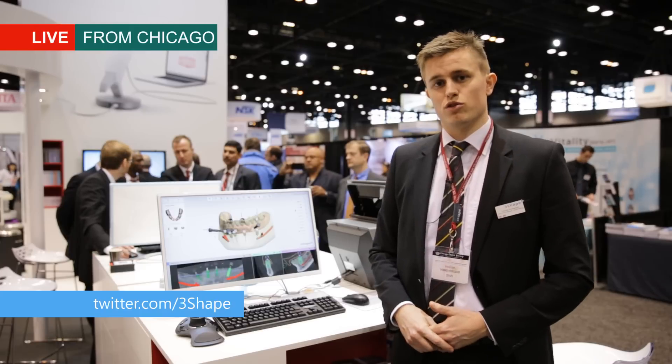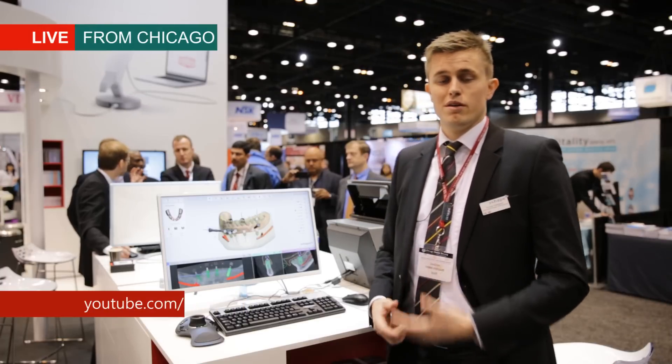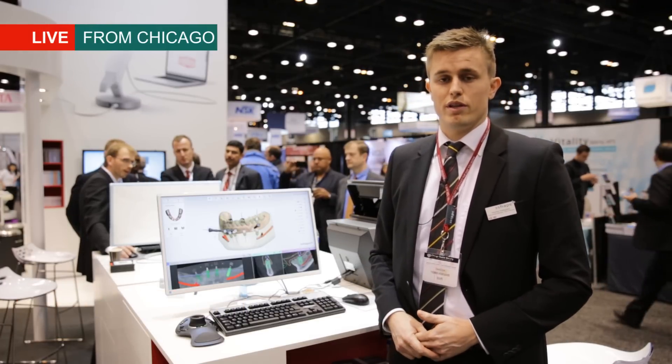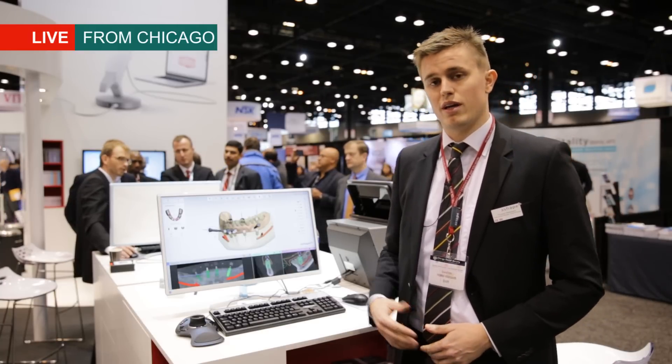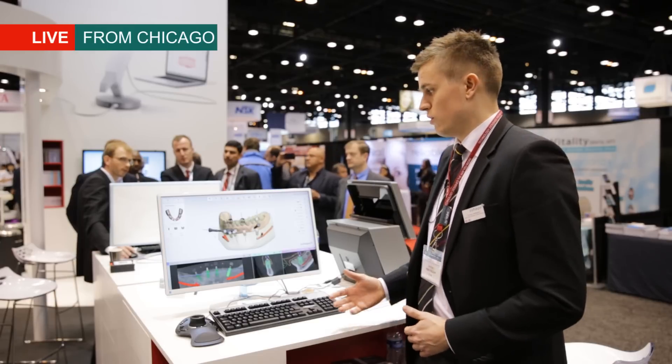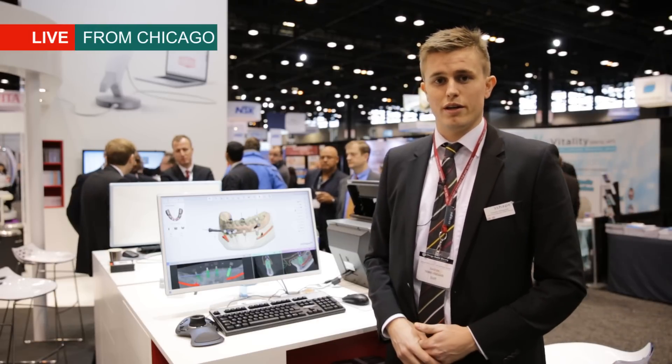That's where we really feel that with Implant Studio we have a solution that's enabling users to do really high quality prosthetic-driven implant planning and surgical guide design. With our 2015 version of Implant Studio, which we are showing for the first time here in Chicago, we are showing an optimized version and launching a new workflow for edentulous treatments of patients.